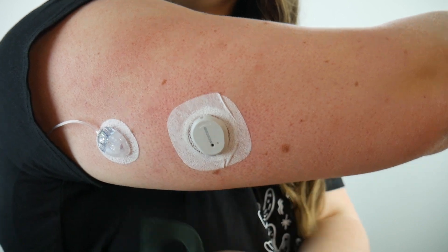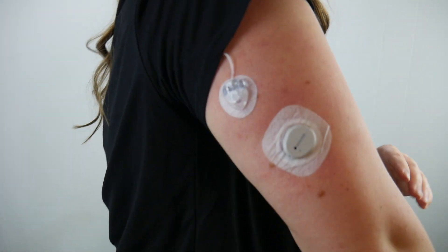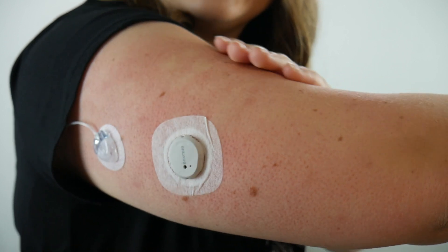And then you can peel off the green. Oh, look at that crease! Oh well, could have been worse! There she is — Dexcom G7! We did it! It's on. I did not feel the poke at all and it feels really good. It's so much smaller than the G6 — I probably should have mentioned that before. Obviously the profile is way slimmer. It's flat, it's little. It's actually crazy how little it is. That's really cool.